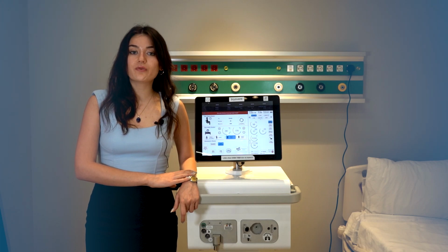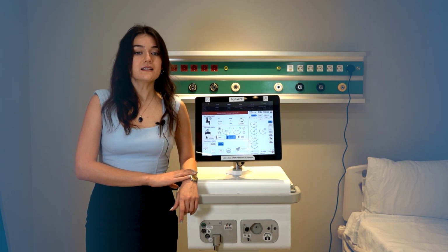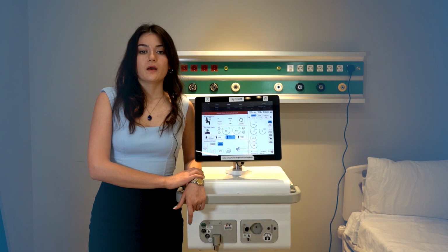The pressure-controlled ventilation mode is a mode in which the ventilator controls the pressure applied to the patient's lungs. In this mode, the ventilator maintains a specific pressure level and adjusts the patient's breathing accordingly. This mode is particularly useful in cases where the patient's lung elasticity is reduced, respiratory muscles are insufficient, or a specific tidal volume needs to be maintained.